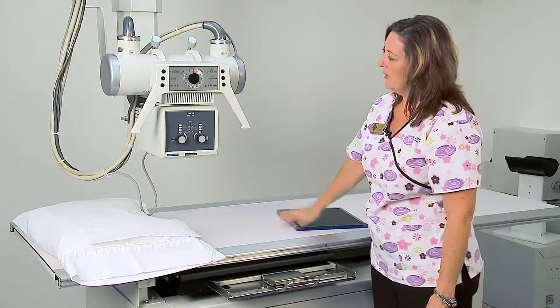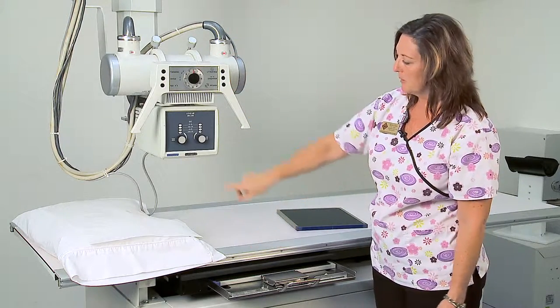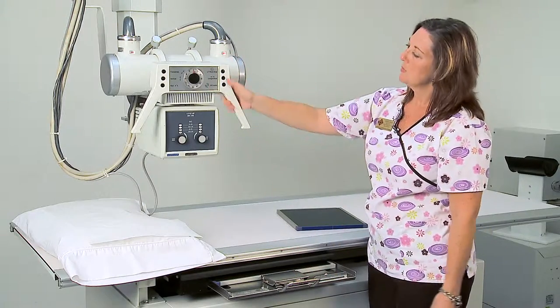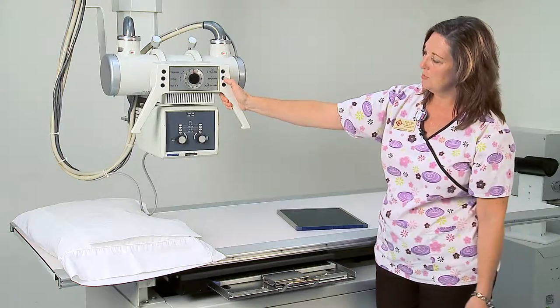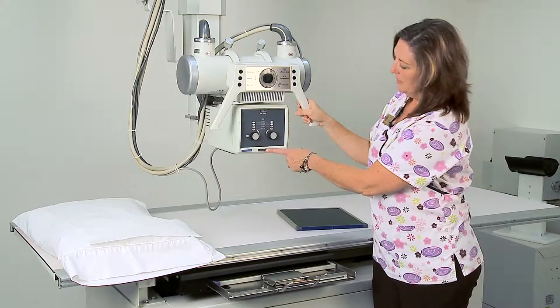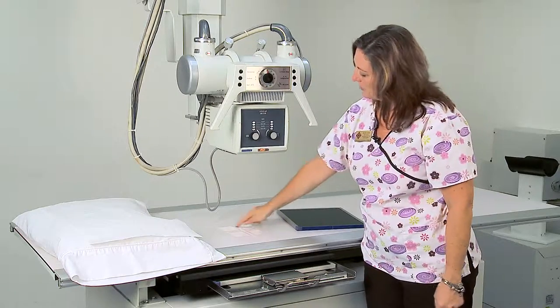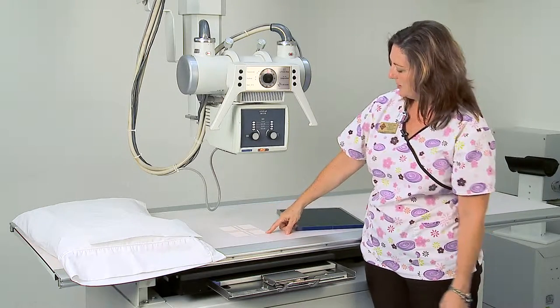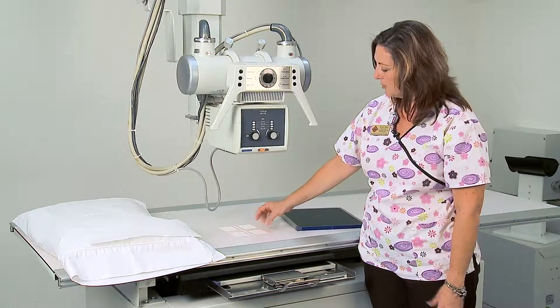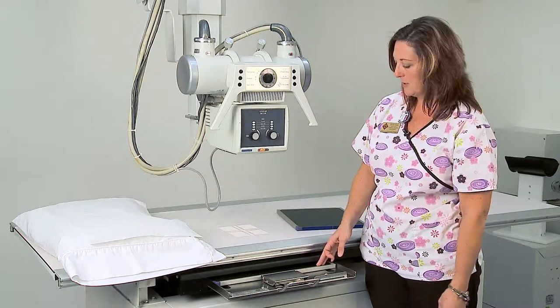Now we want to align the tube to the bucky. So we move the tube longitudinally by depressing the button and sliding it down. There is a button called lamp — if you depress it a light comes on. This light indicates the light field size that should correlate with the image receptor or cassette you have placed in the bucky tray.